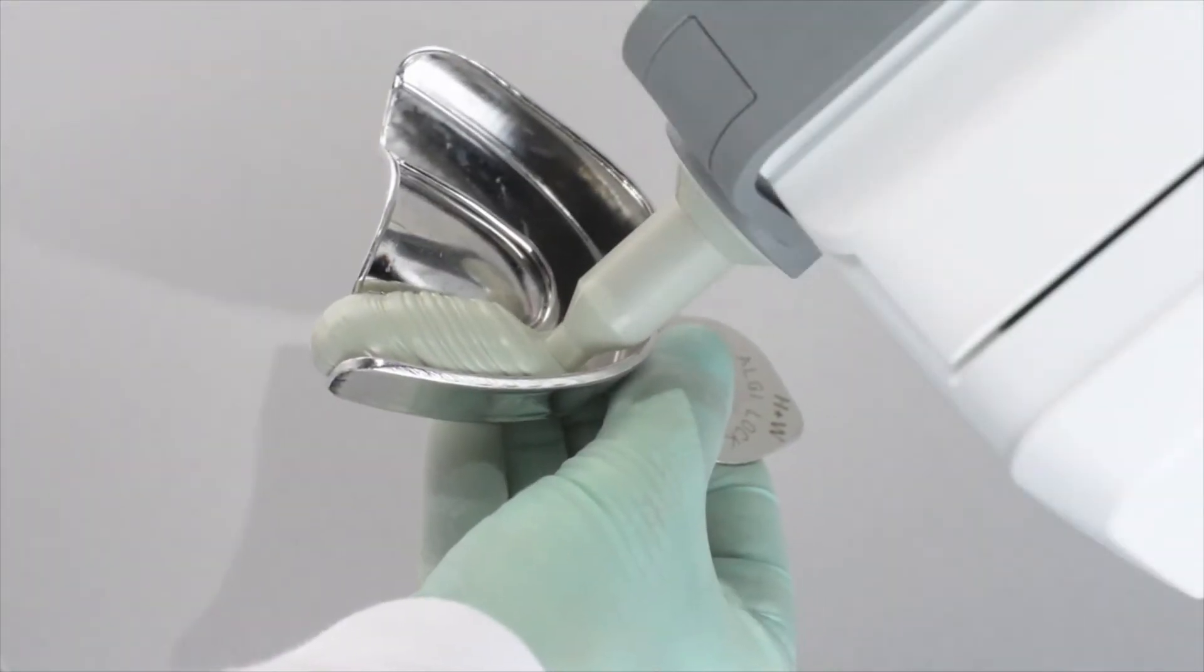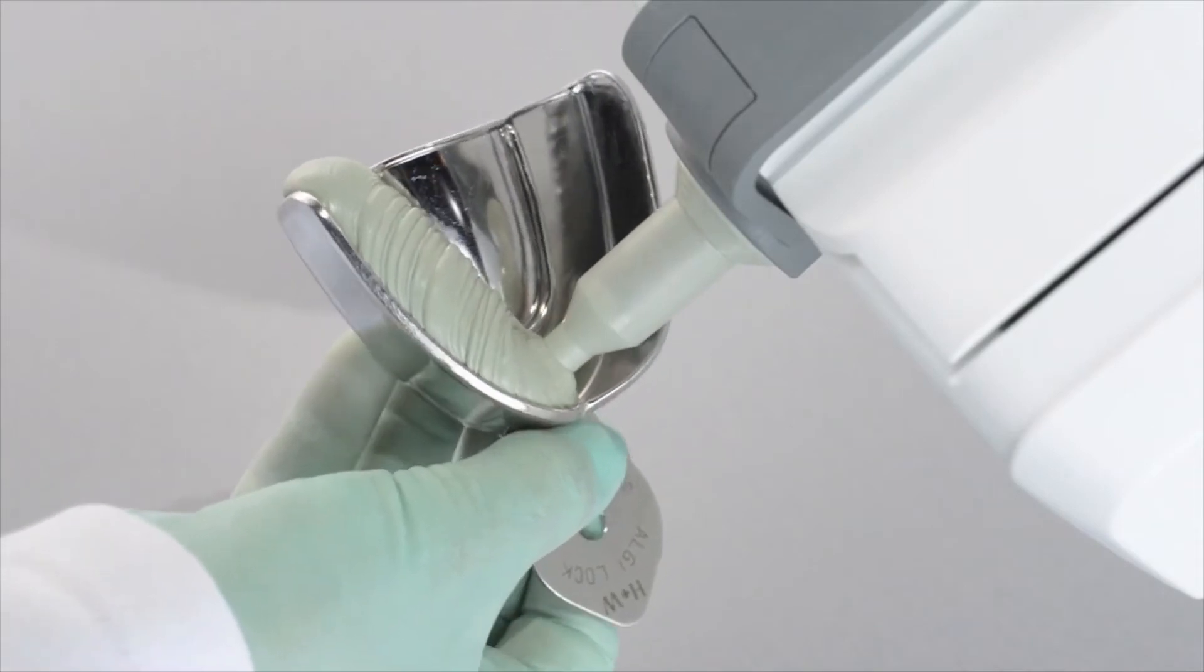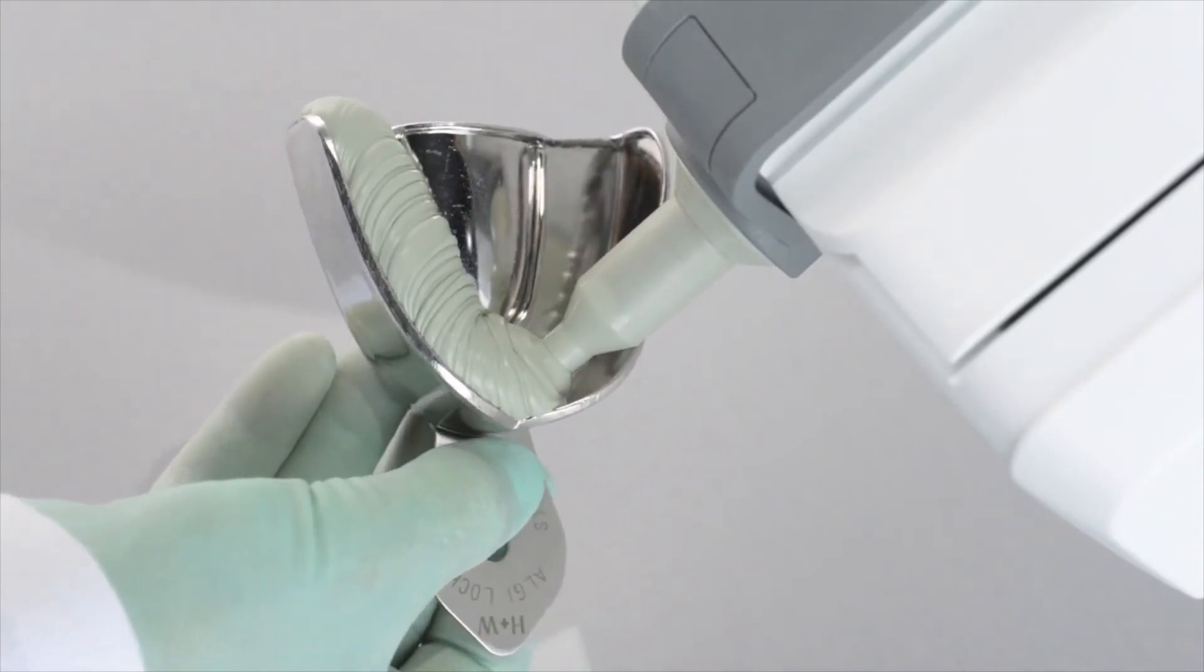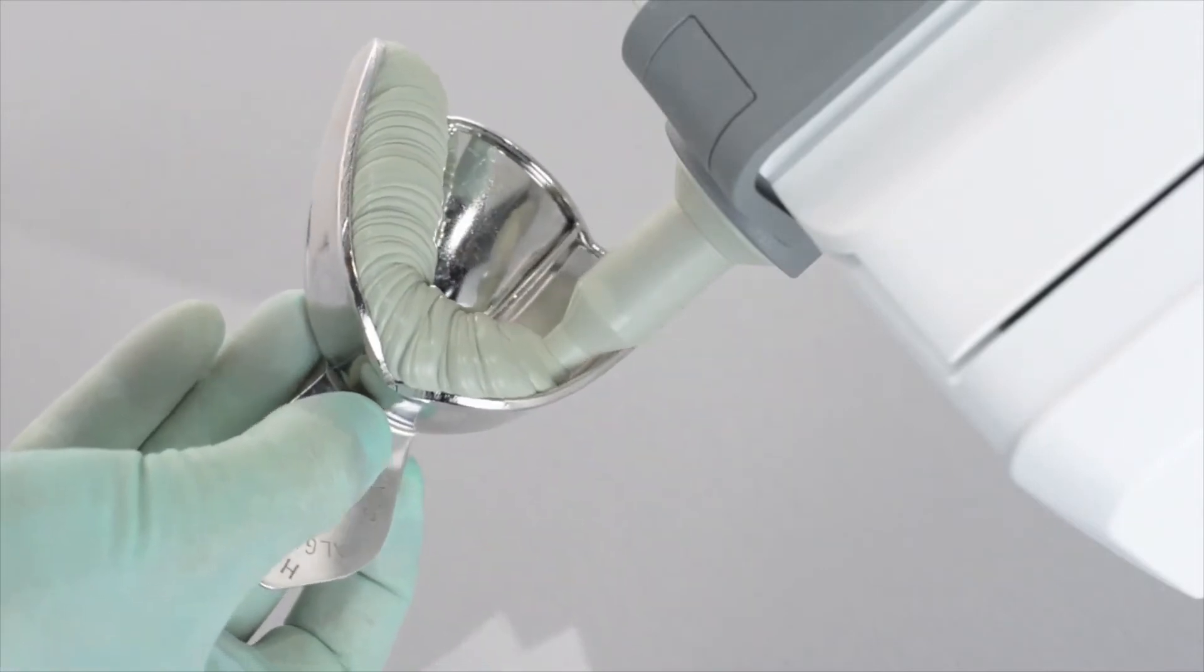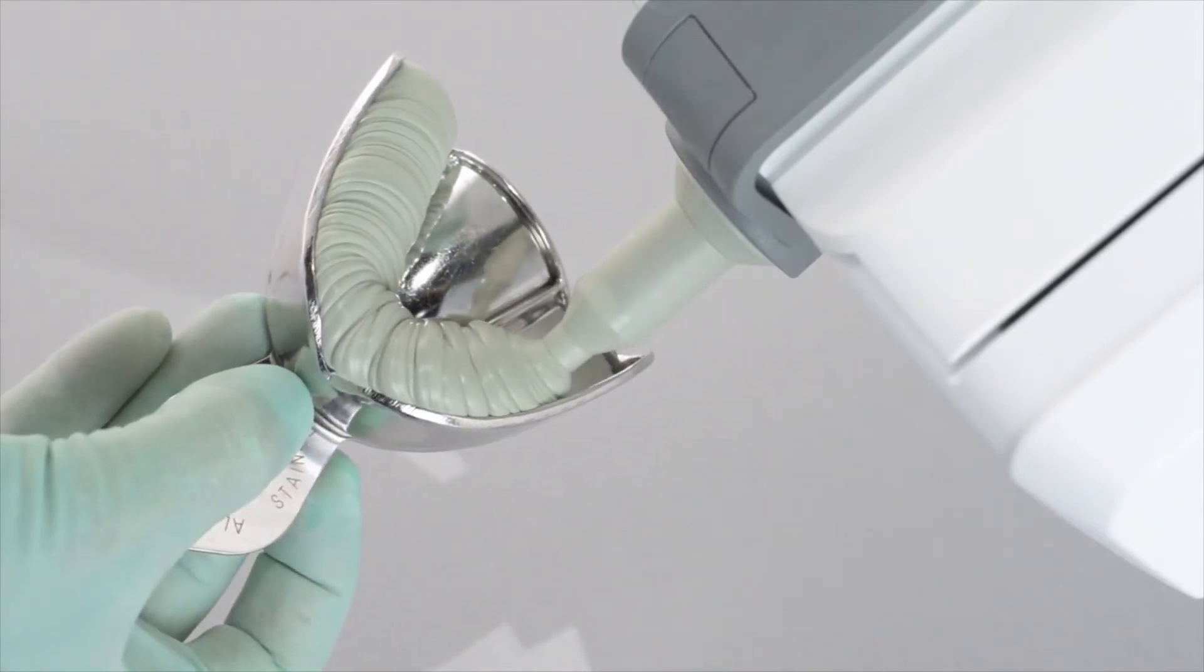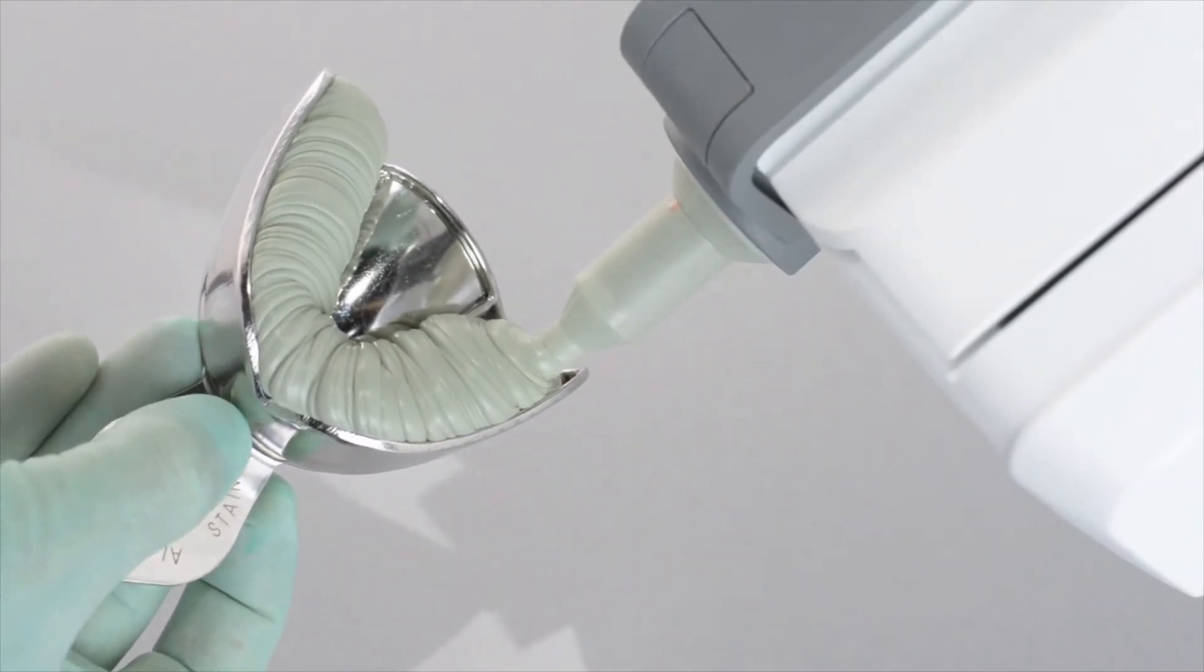Automated mixing and dispensing add convenience, speed, and precision, giving you full control of the impression procedure. Hygienic direct filling of the tray eliminates risk of cross-contamination, and being able to dispense premixed material in the exact amount needed saves time and reduces costly waste.